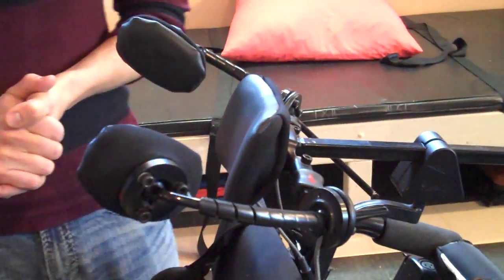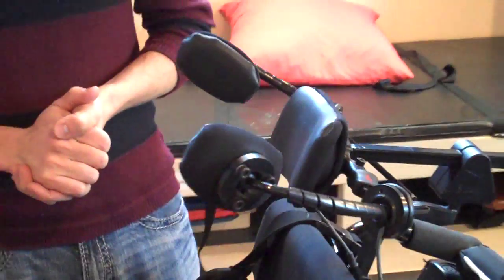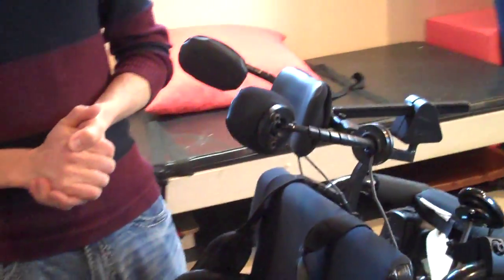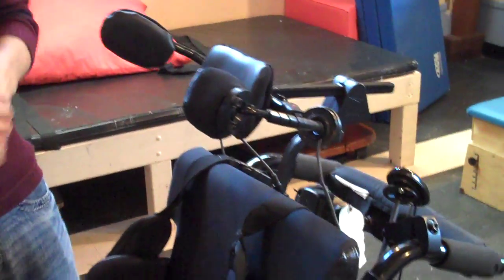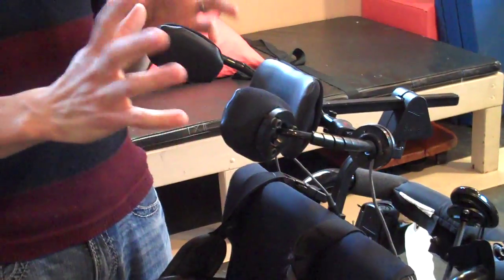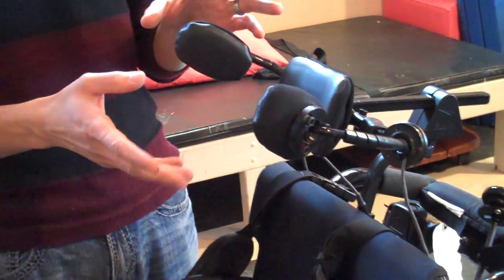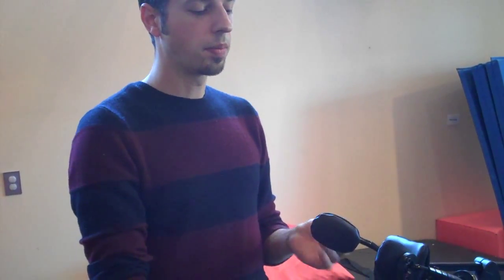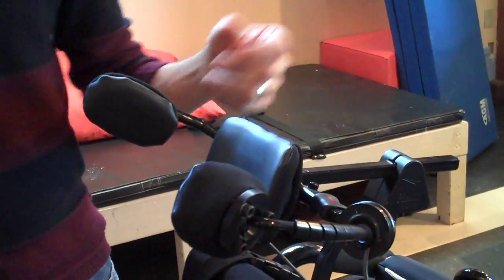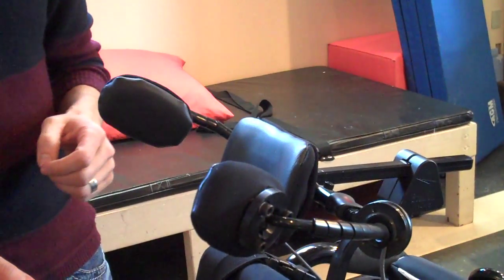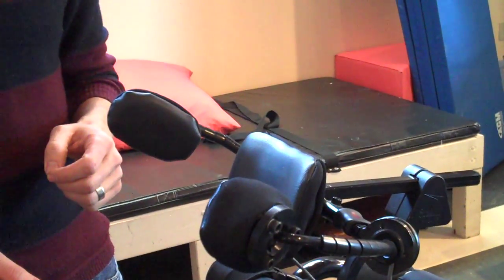This is the Elite. It has three separate pads, and this is the one I prefer to use. There are more basic ones where the side pads are on a door hinge, so they just hinge away. But these are completely movable because they're on a ball and socket type of mount.